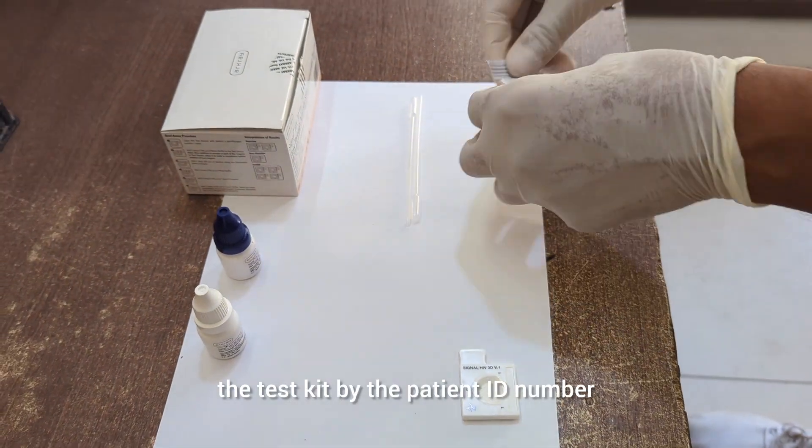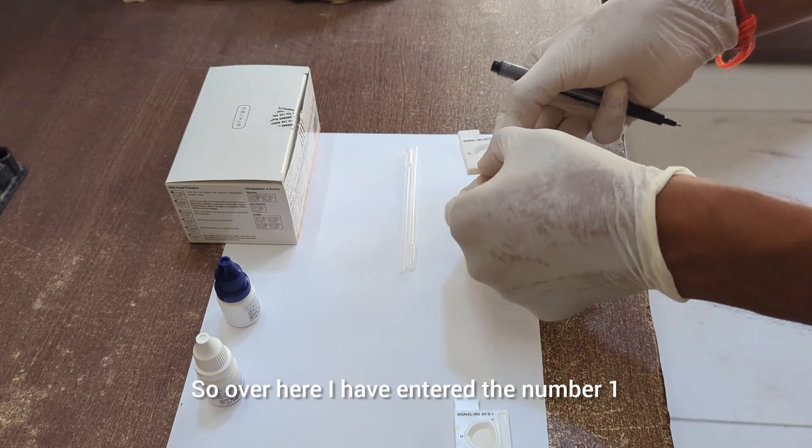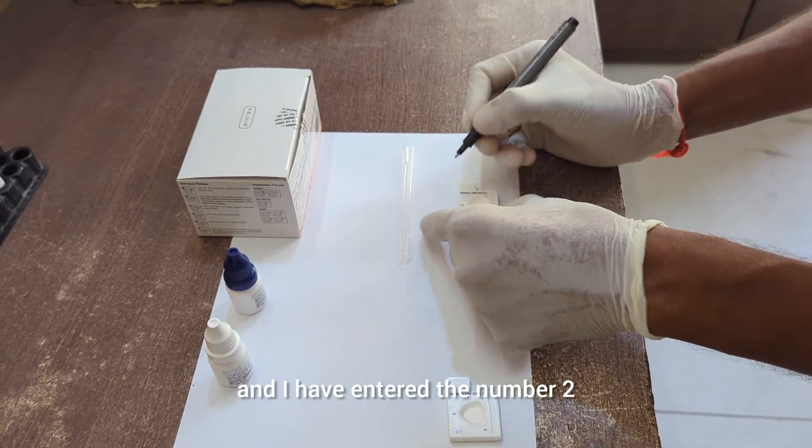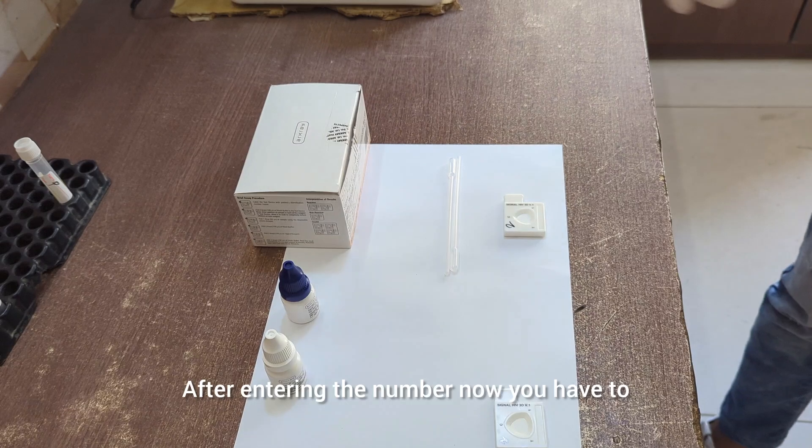Before doing the testing, you have to label the test kit by the patient ID number or by the serial number. Over here I have entered the number one and I have entered the number two.